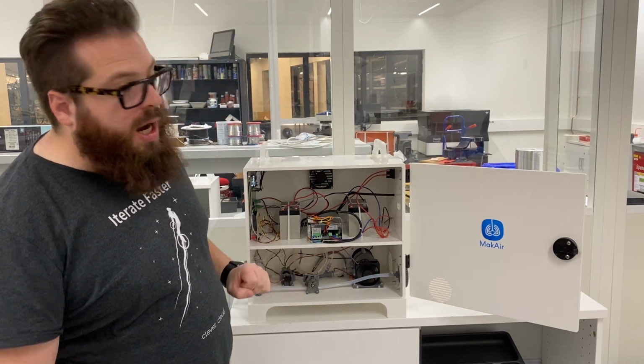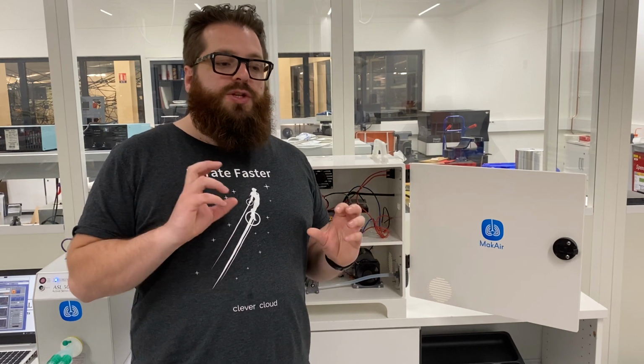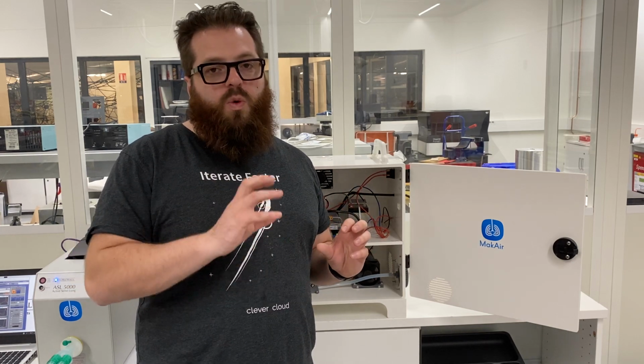The pneumatic area is simple, and it's where the design is based, because MakAir is a ventilator which works by pressure maintenance. So basically, what you do with MakAir is not watch the volume, but the pressure. And those are the two different kinds of ventilator you can find in the world: there is pressure and there is volume. Right now, MakAir is made on the pressure side.